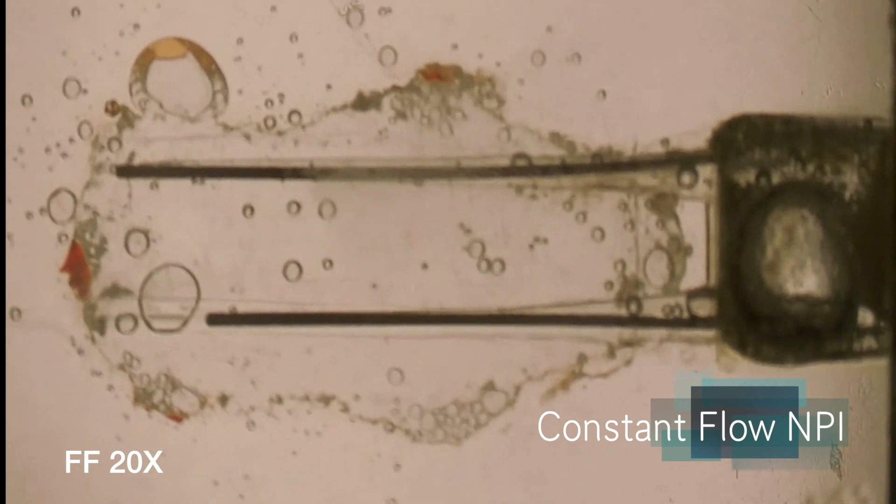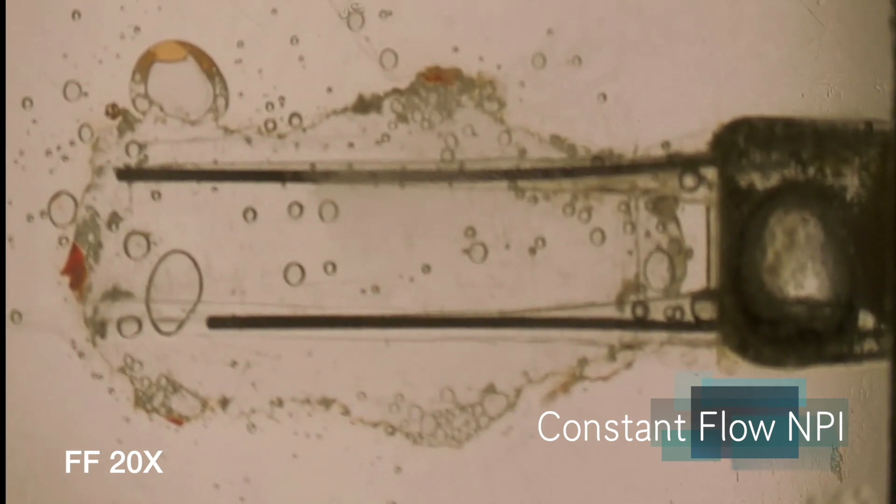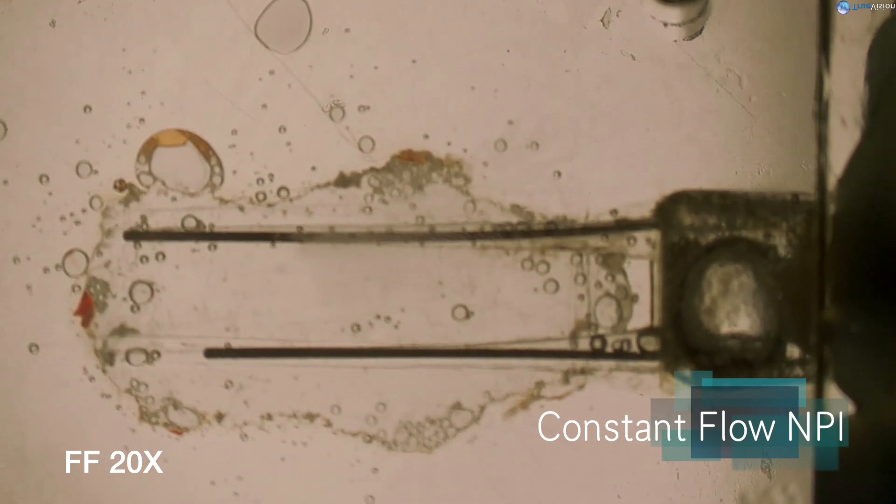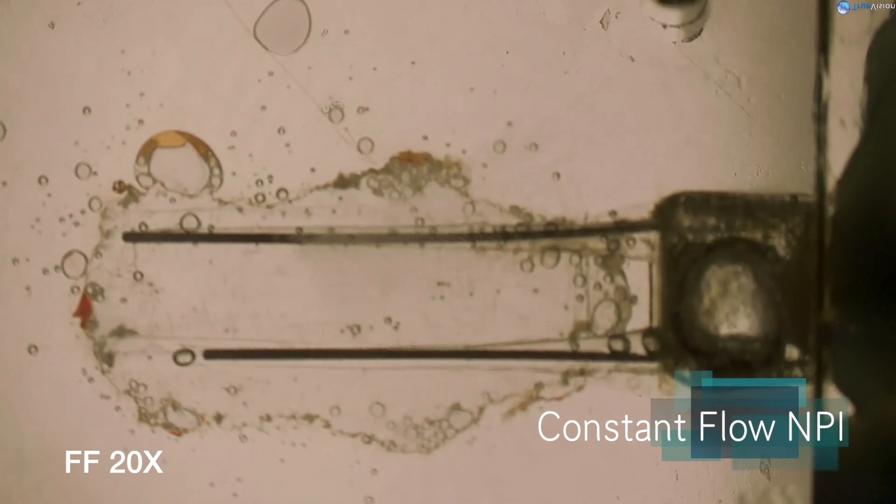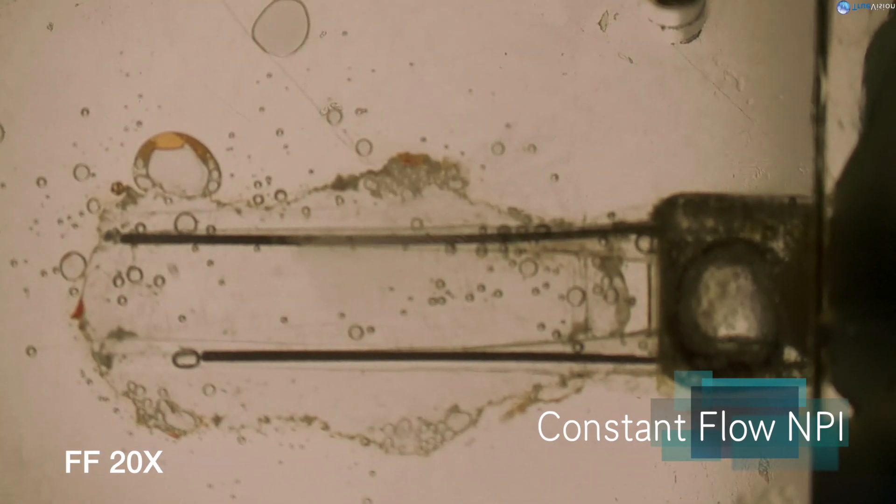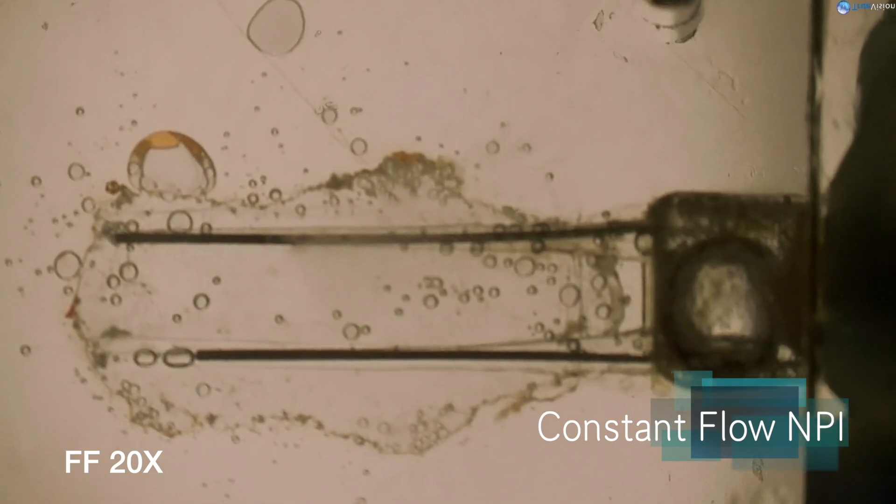And these are the latter reaches. This is probably not a fair test, just like the GentleWave study wasn't a fair test. And again, I'm not claiming prosciutto as pulp tissue. This is just a relativity test for dissolution speed and capabilities of different methods of solution activation and placement.